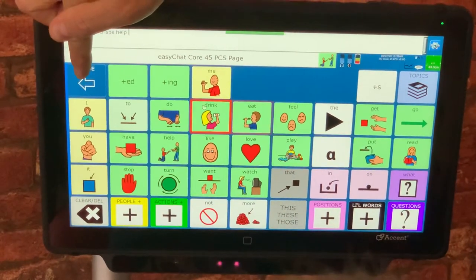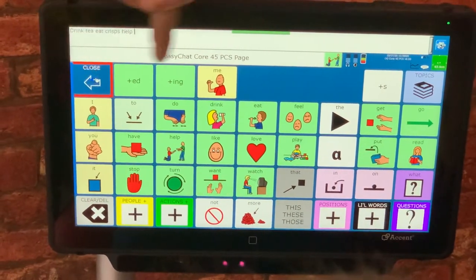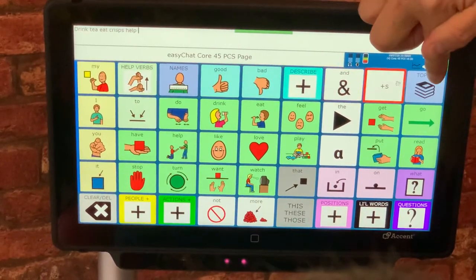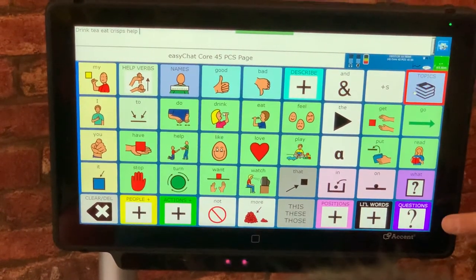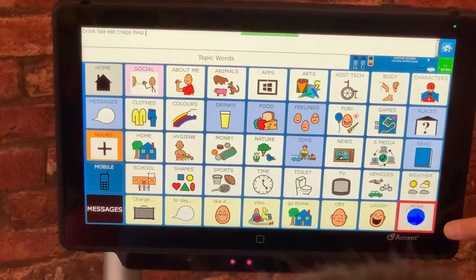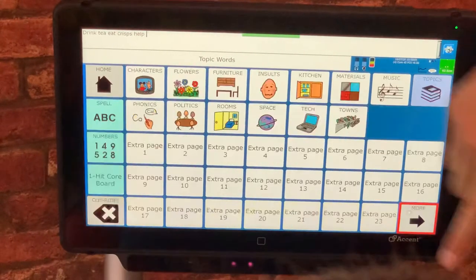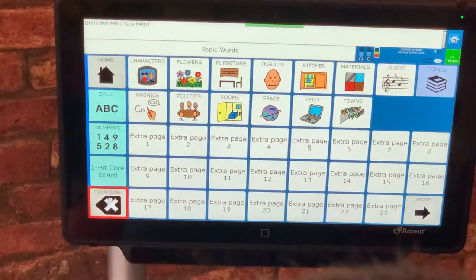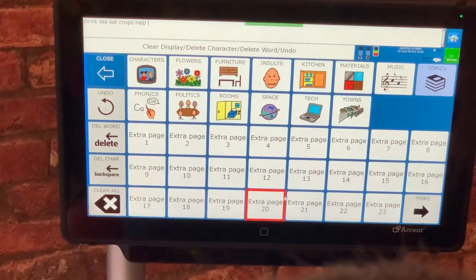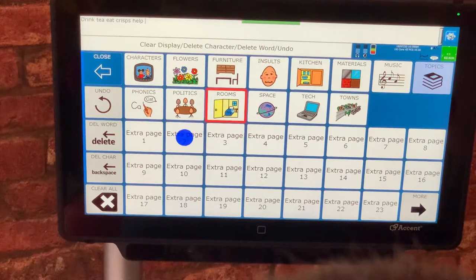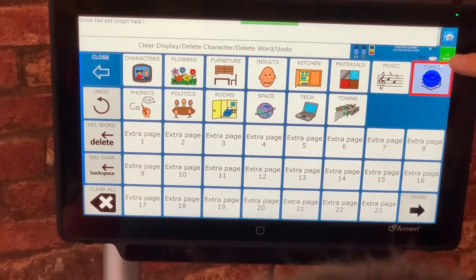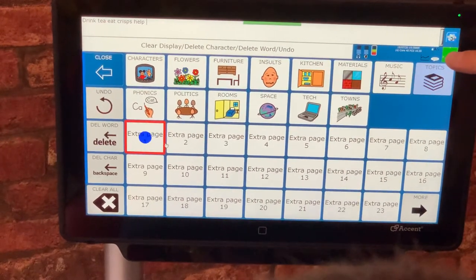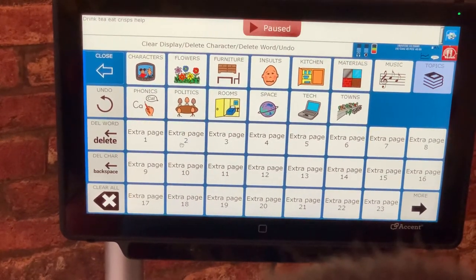I'm just going to get Oscar here to go into the top corner to this corner to this corner to this corner and to this corner. And that works really nicely. So we've calibrated really well. I'm just going to pause that out again.